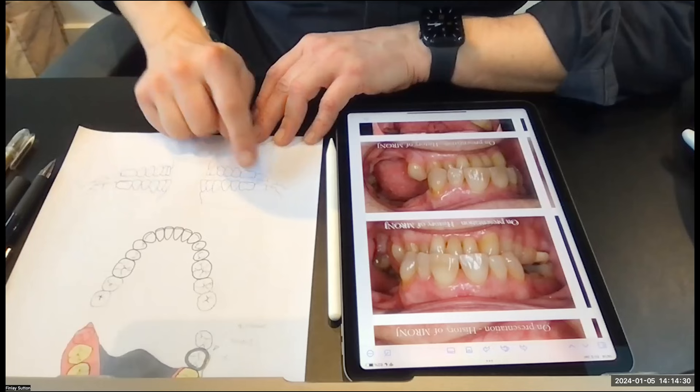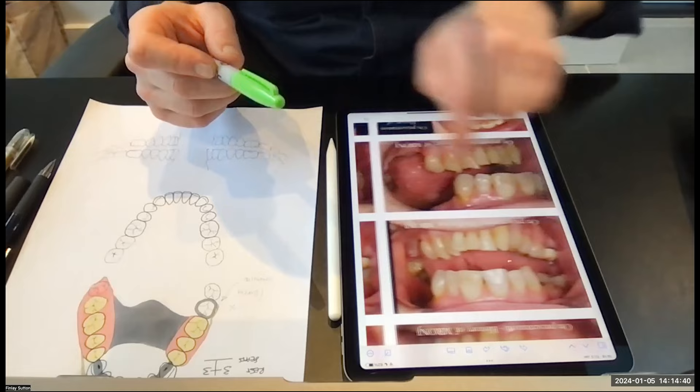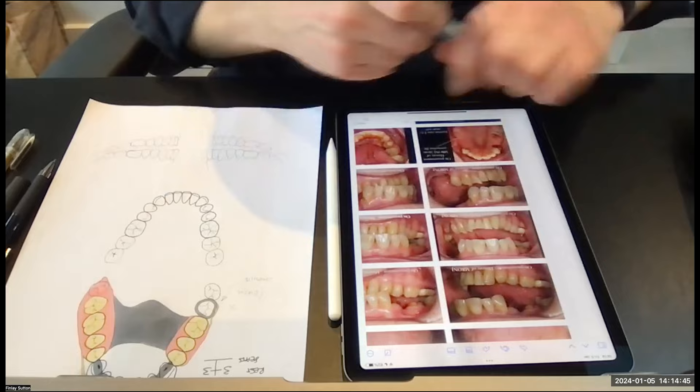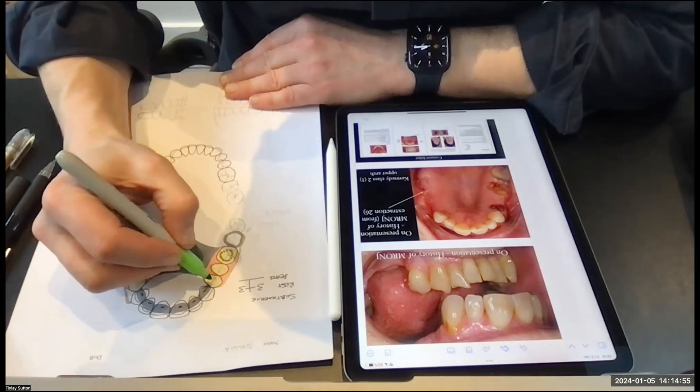This is a side view, and I think this is quite important. Before I forget, we've got those over denture abutments and roots there. I'm not going to use them — I'm just going to have the denture sitting on those areas just there. I usually do these in green for some reason: the over denture abutments.